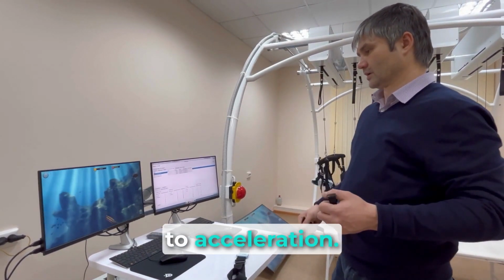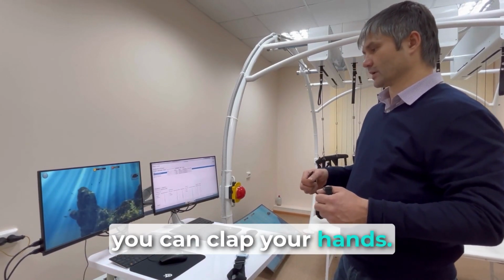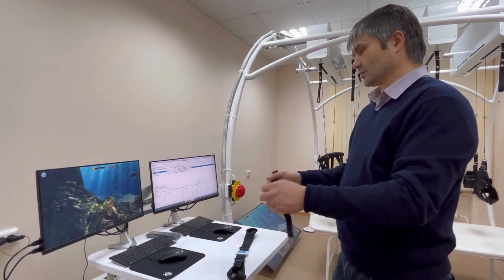The sensor reacts to acceleration. The movement should be sharp. For example, you can clap your hands. This will also have an effect.